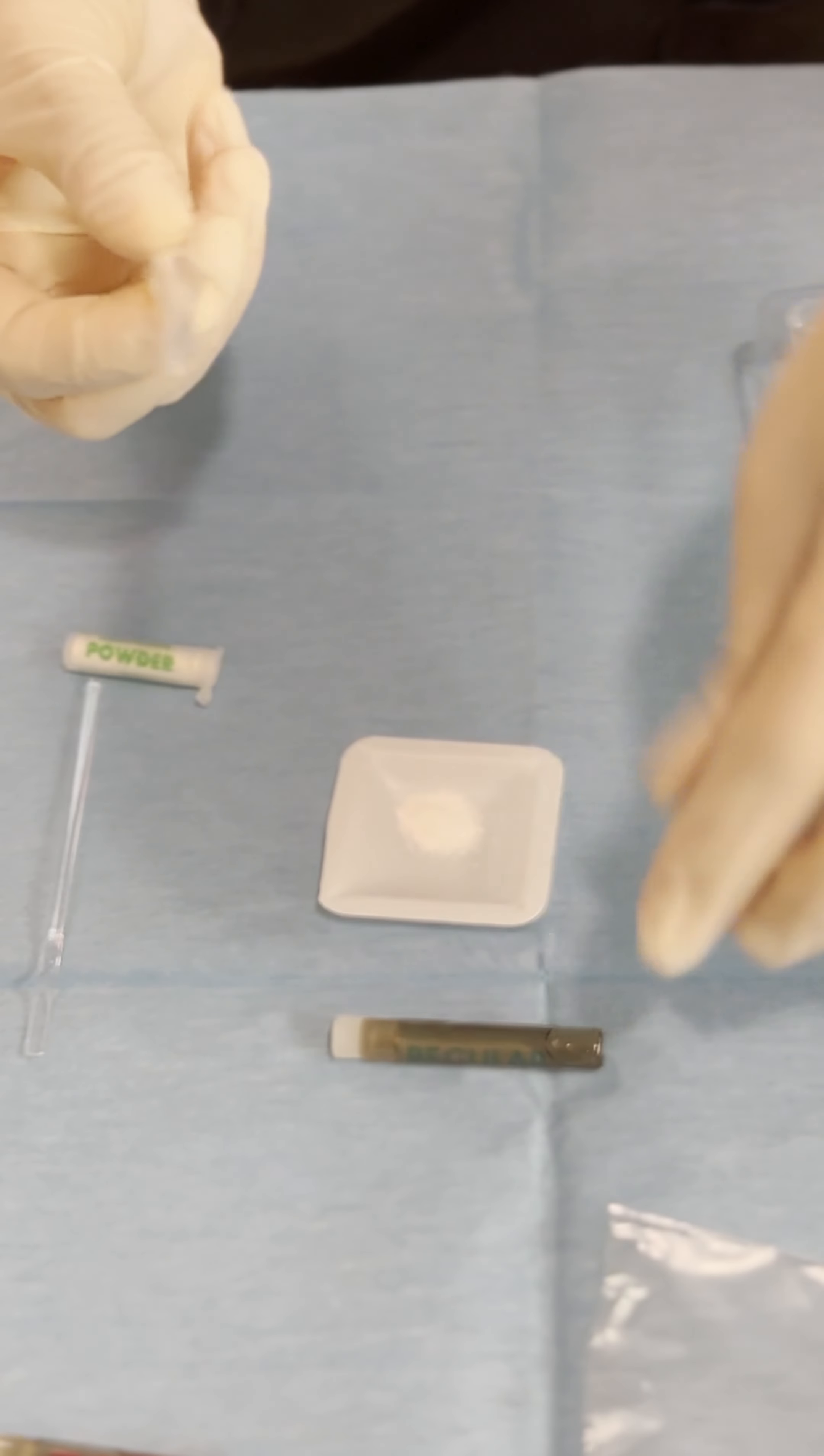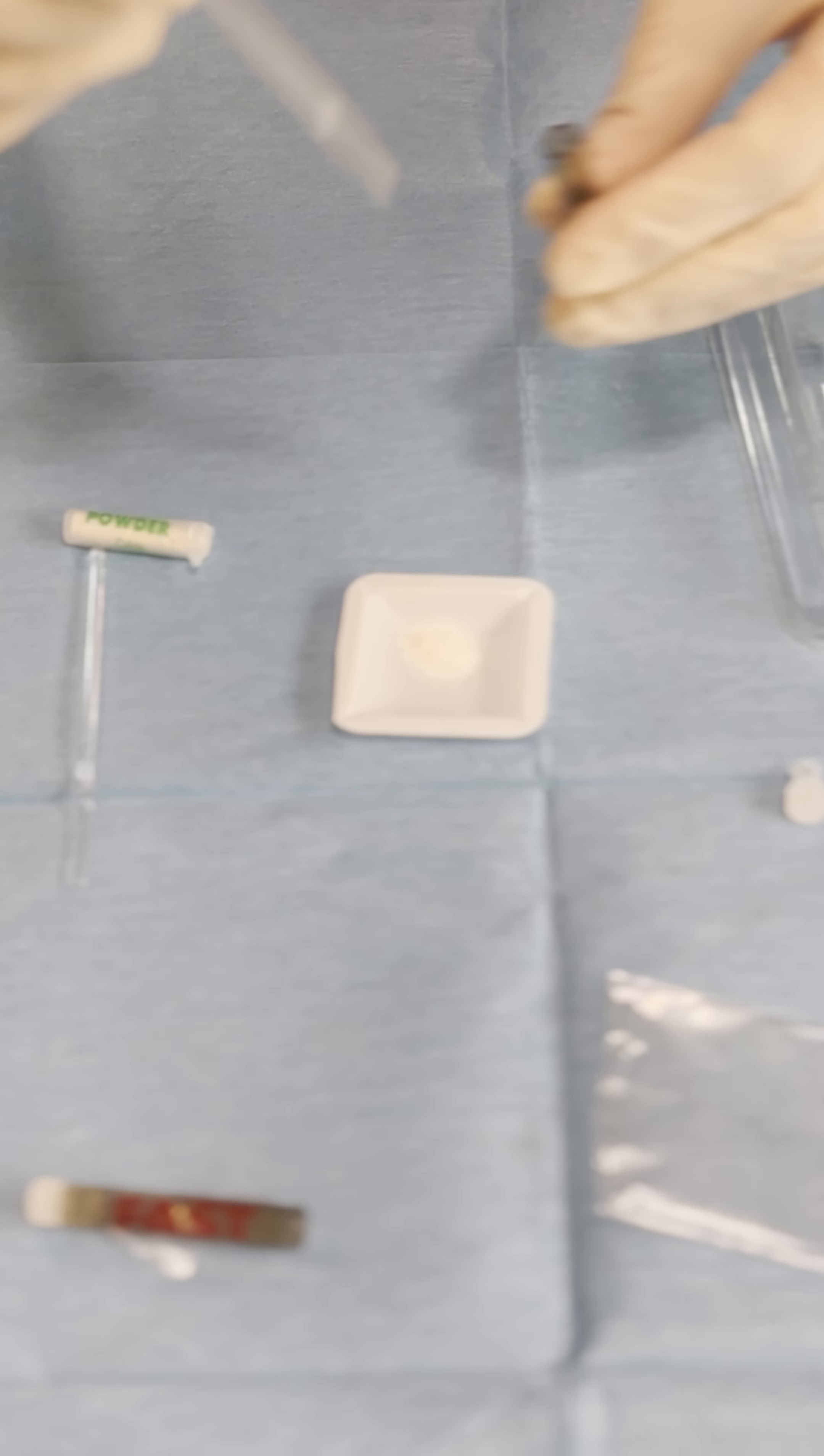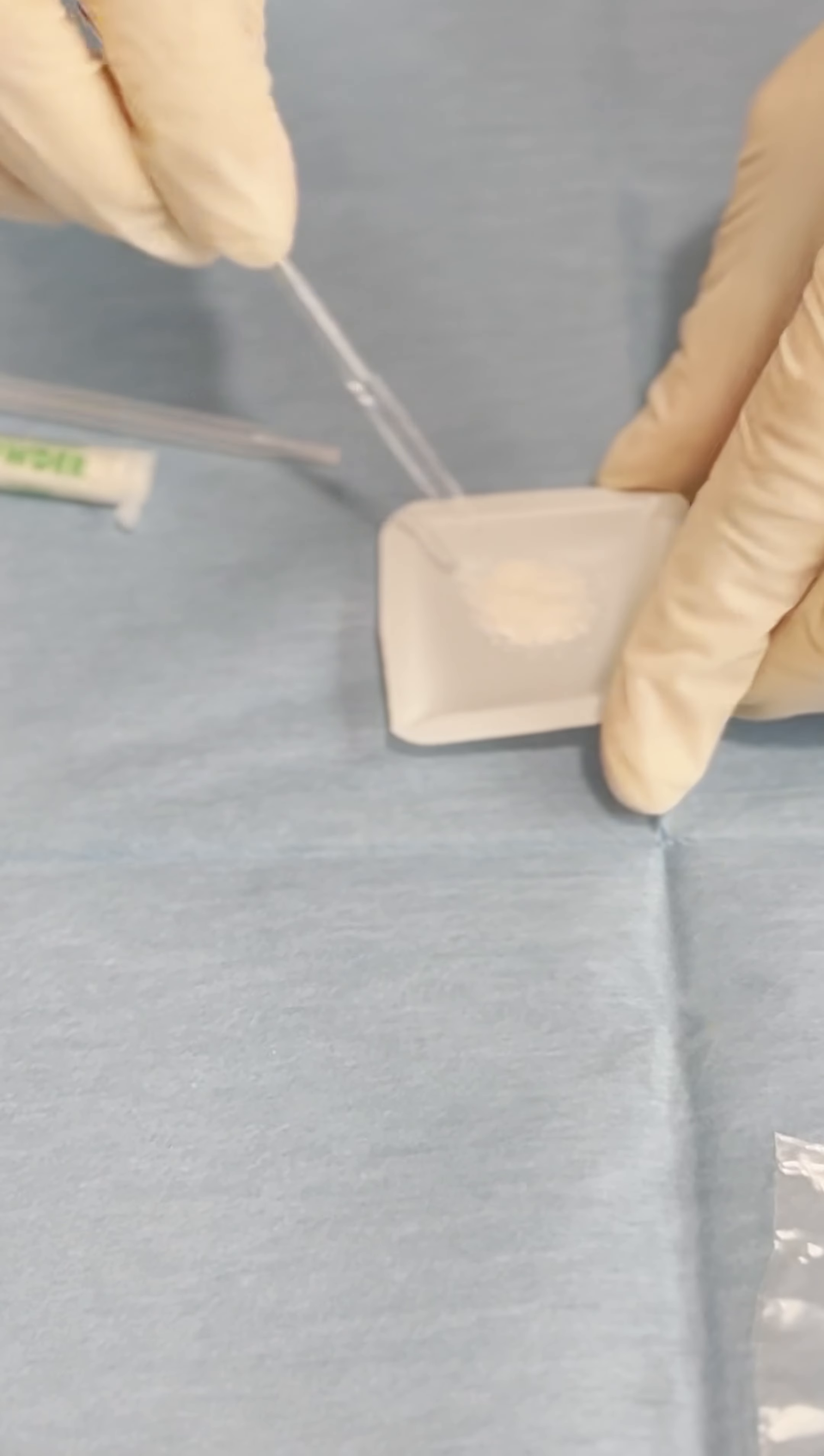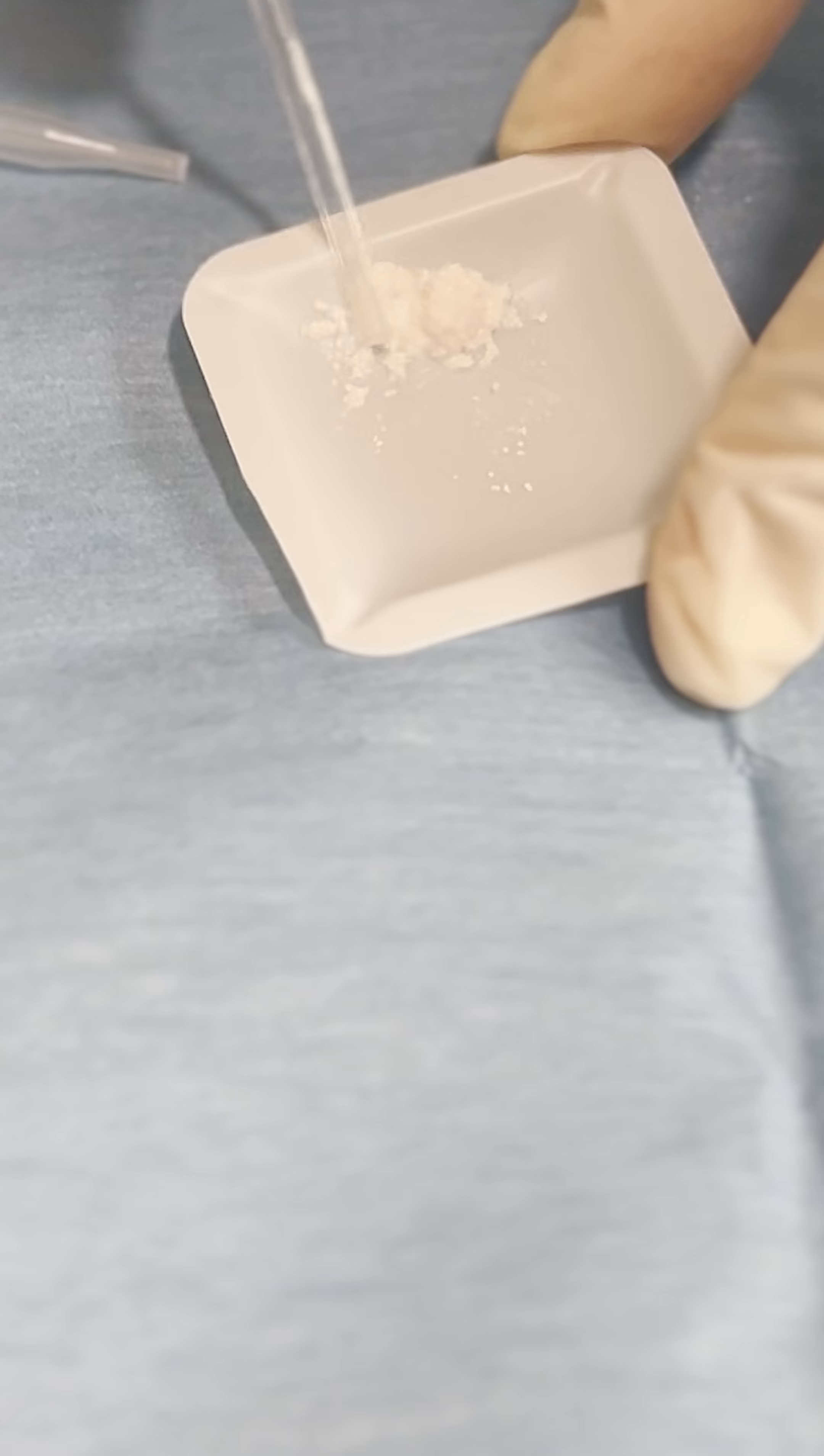Here we have the pipe, in this case I'm going to use the regular since it's a physiological solution and you have to mix it very easily drop by drop in order to not give it too liquidy kind of texture. You want it to be really fluffy but not too soft. Remember that when you want to do this you have to incorporate all of the granules and this is the kind of consistency that you want to reach.